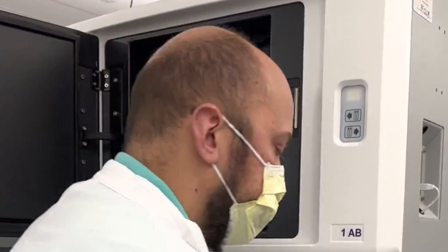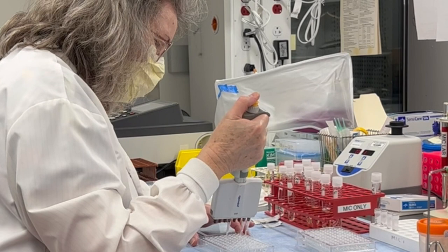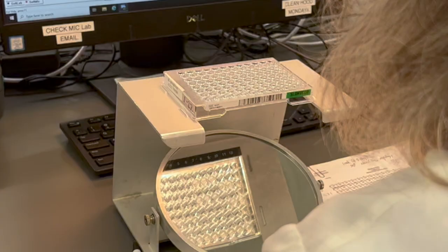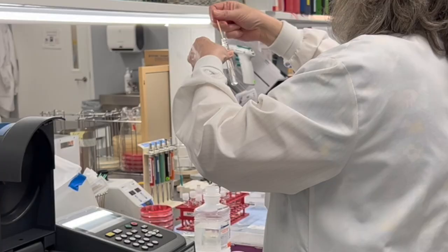In the MICs lab, we perform manual AST methods including broth microdilution and disc diffusion assays. These assays are performed on organisms where automated panels are not available, such as yeast, mycobacteria, and anaerobes, or for certain drug-bug combinations as requested by physicians. Here, a technologist is reading a broth microdilution plate and recording the MIC — the lowest concentration of the antibiotic that inhibits bacterial growth — to determine the sensitivity of the bacteria isolate to a particular antibiotic.